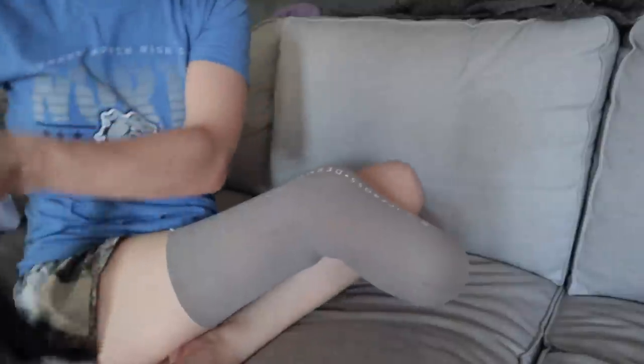What we're about to see is my leg skin after about six and a half, seven hours in the leg on the first day. Hopefully there aren't going to be any red spots or bruises — those signal a problem. The fact that I haven't had significant pain makes me think it's probably okay. If you're wearing a prosthetic consistently, you want to take it off once or twice during the day to check your skin and make sure there are no major issues. Wow — like no red marks. There's just a little bit of irritation right where my bone comes out. This is freaking awesome. And we're back in business.